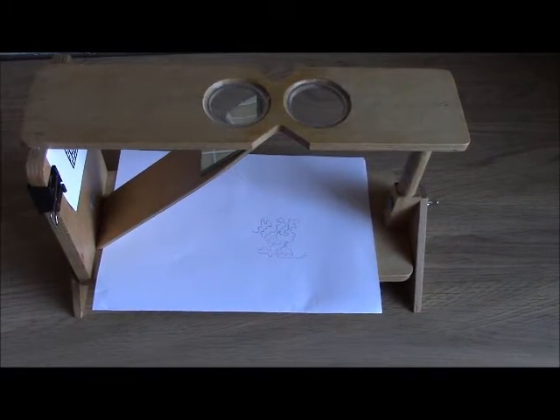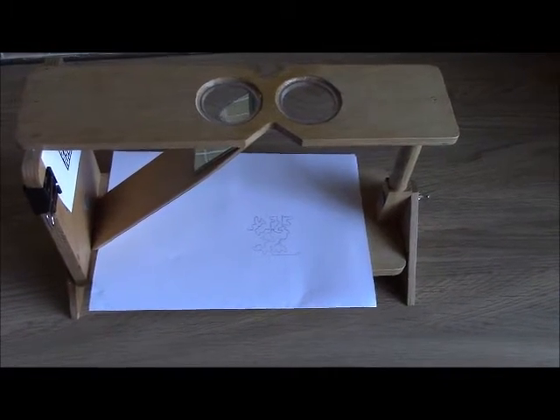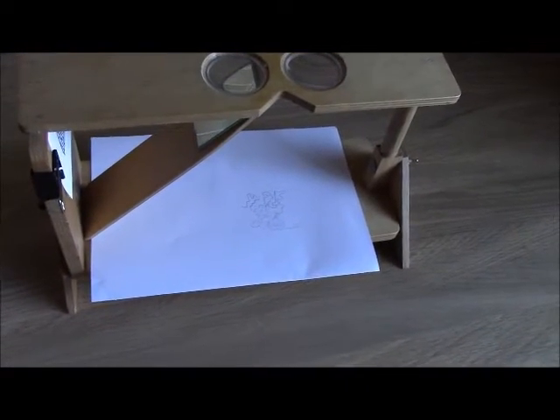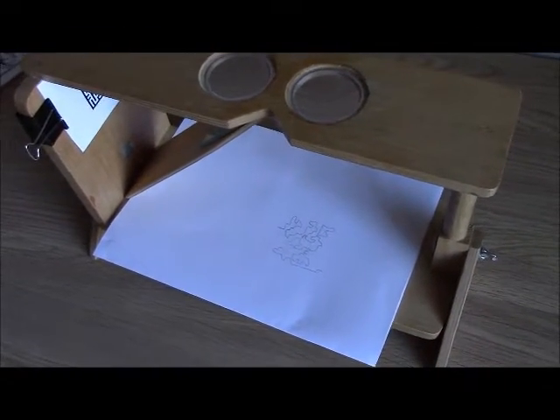Hello, this is a demonstration video of the vision therapy instrument called the Cheiroscope. It's basically like a stereoscope, only it also involves a drawing pad.